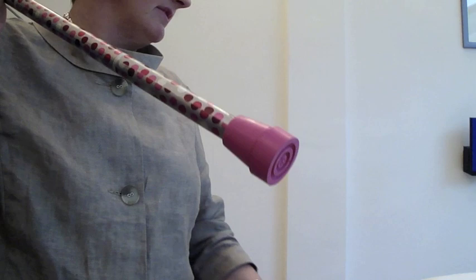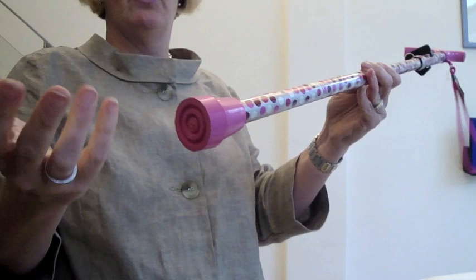Finally, the ferrules can also be changed — they wear just like shoes wear. You simply rock it and pull it off and change it as and when needed.